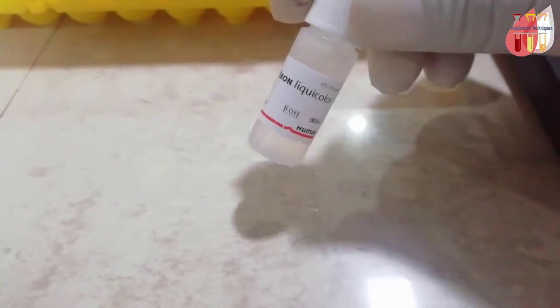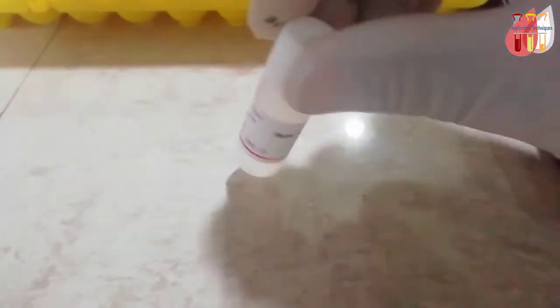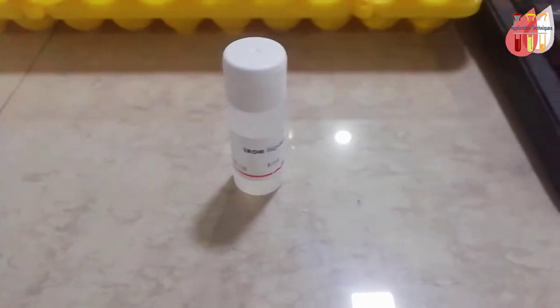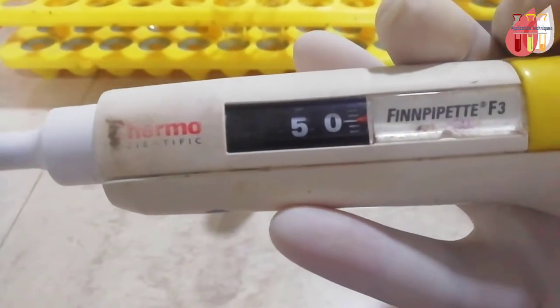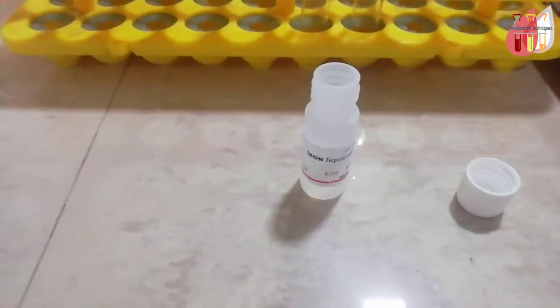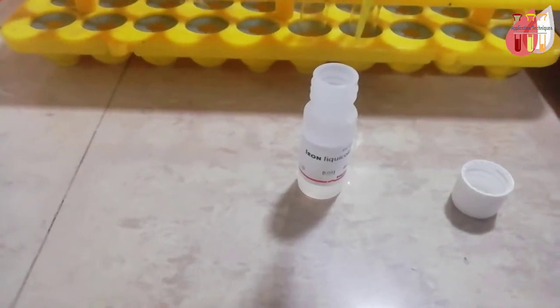After 10 minute incubation, add 50 microliters of standard.